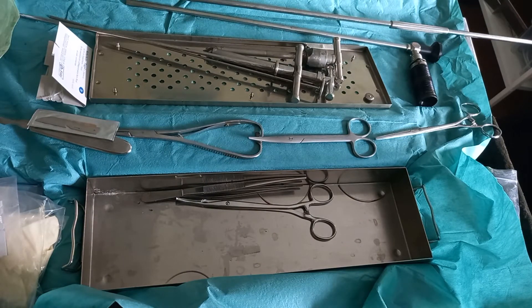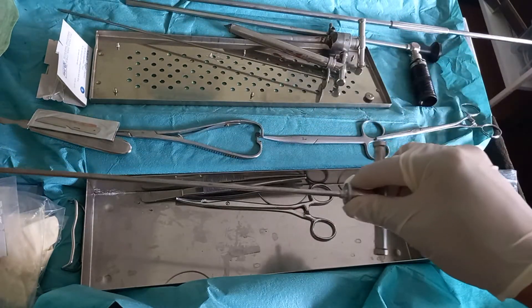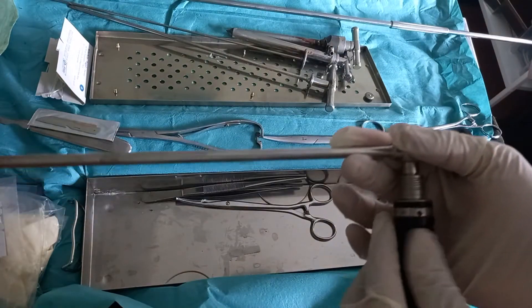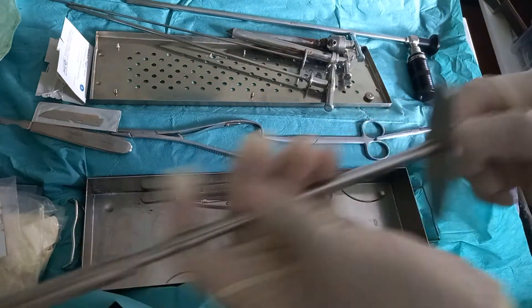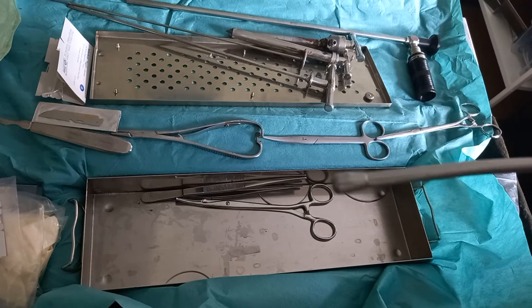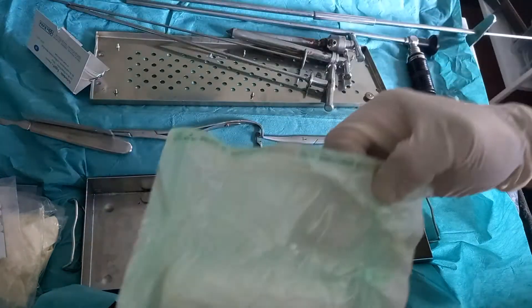So we have everything: the endoscope trocar, the work trocar, the abomasal trocar, and the endoscope with the working lens. The spreader and lens are inserted into each other. As we can see, we can place the lens in the spreader so that we can perforate the body wall later on. And the safety toggle along with the outside toggle to complete the set.